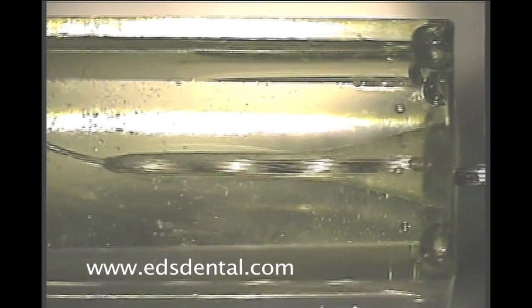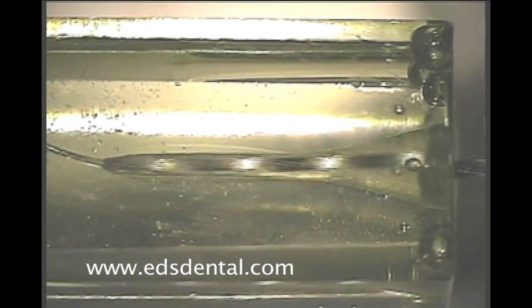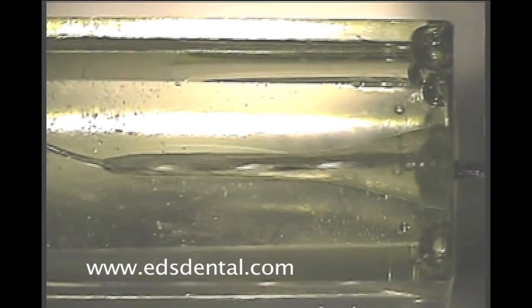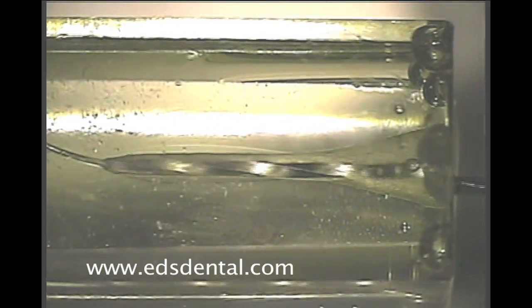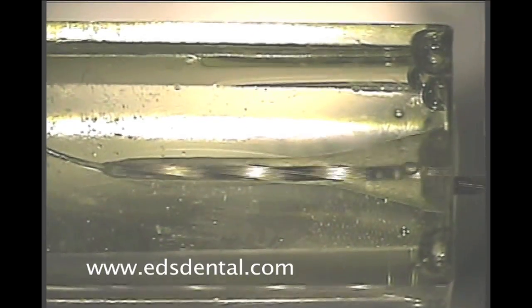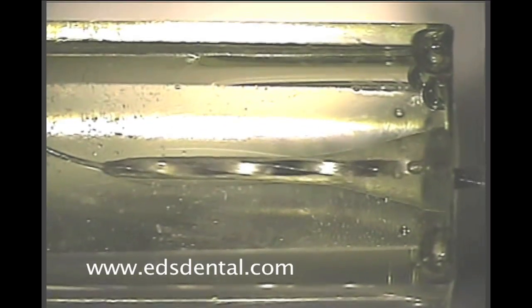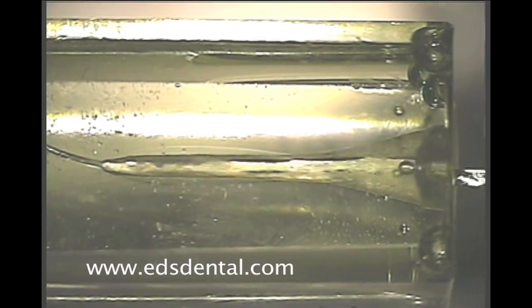The vertical blades direct debris into the troughs along the length of the reamer as well as the space created by the flat along the reamer's length. Upon the pull stroke, minimal removal of dentin occurs because the blades are in the same plane as the plane of motion.